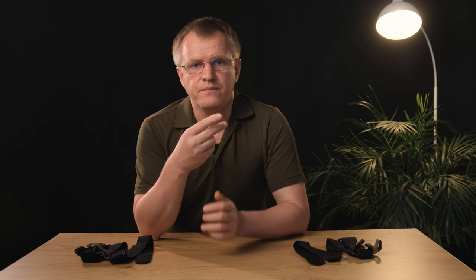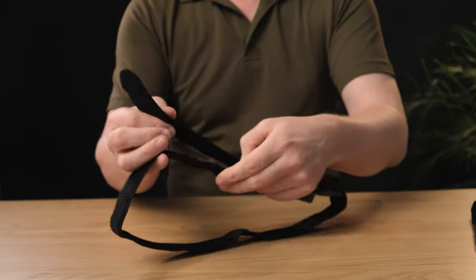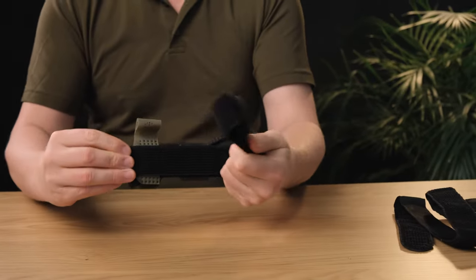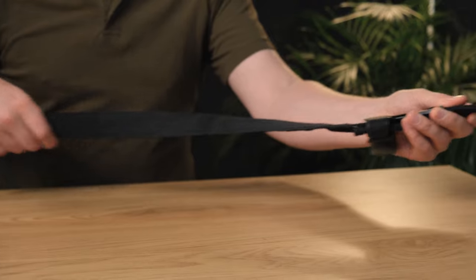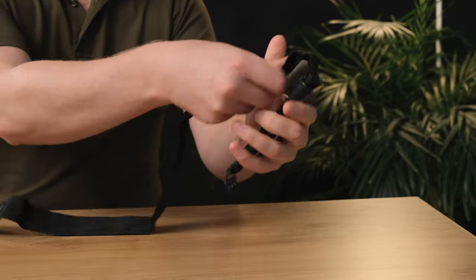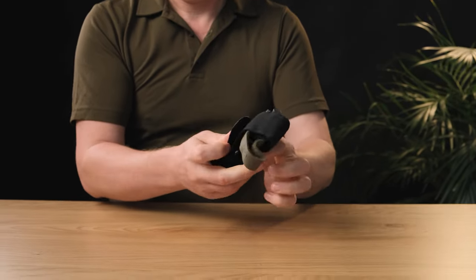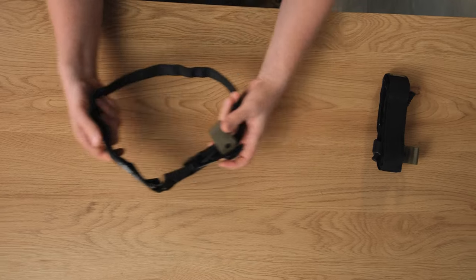There are two classic folding methods: conventional and snail. That is, separately in a ring for the upper limb, and separately in an unfolded form for the lower limb.